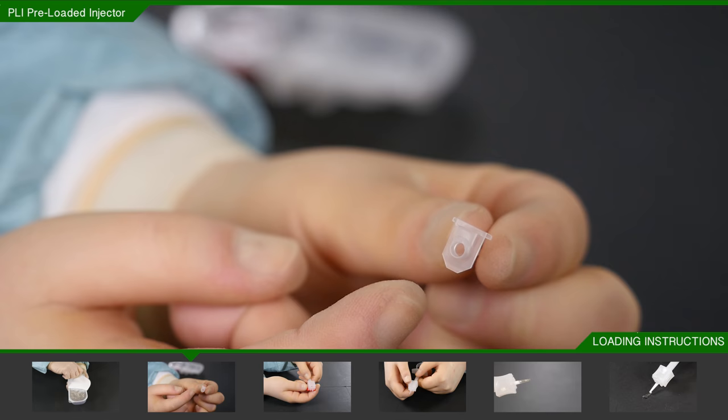Slide the tip fully into its housing, making sure that the V-shape is pointing down.